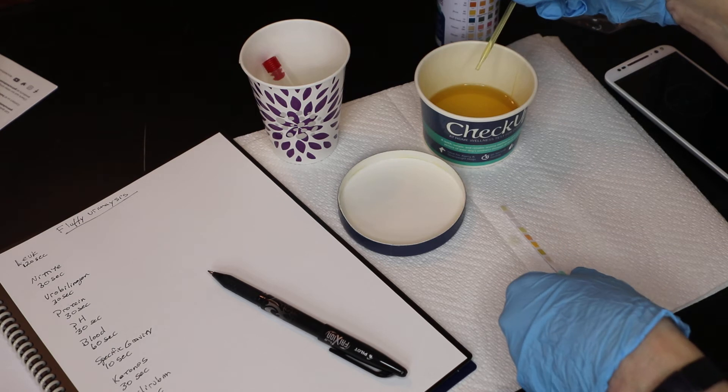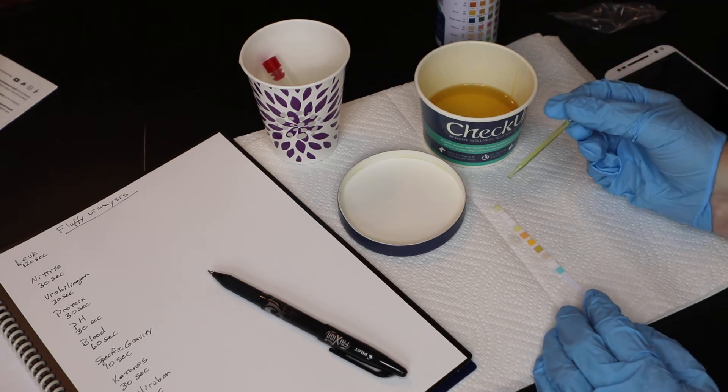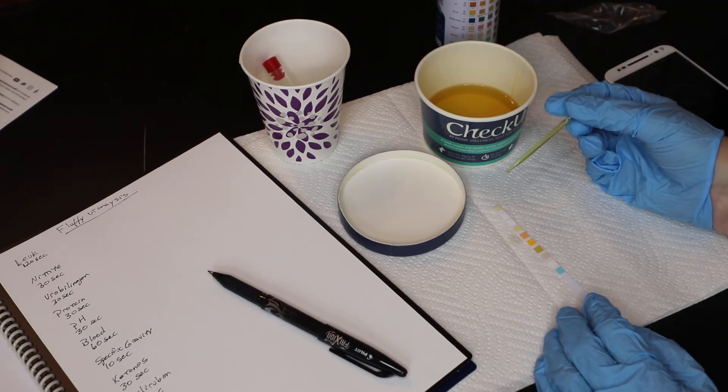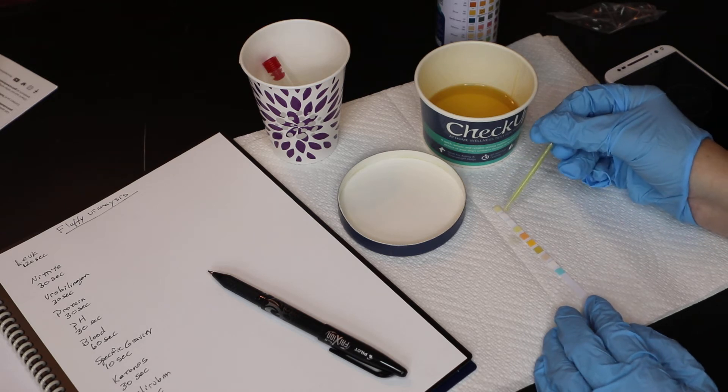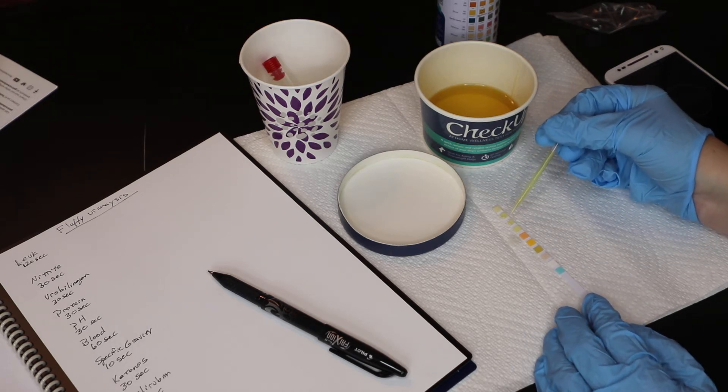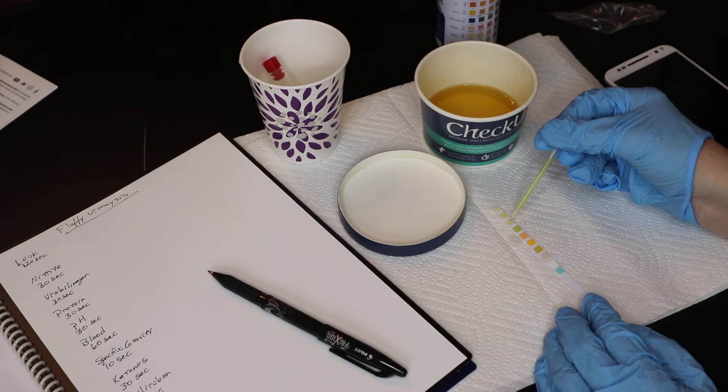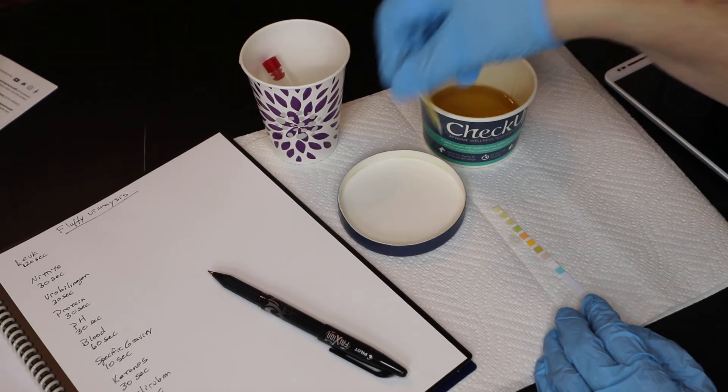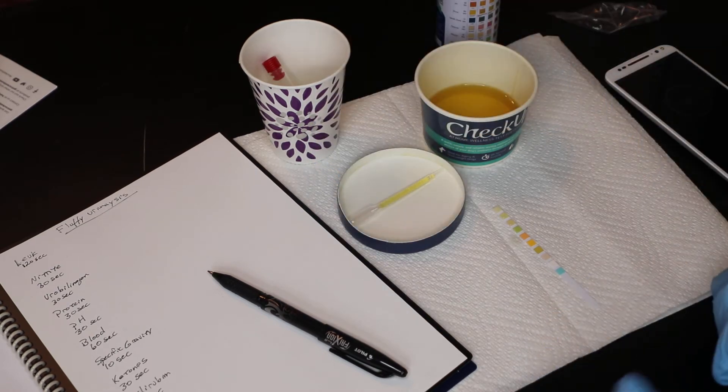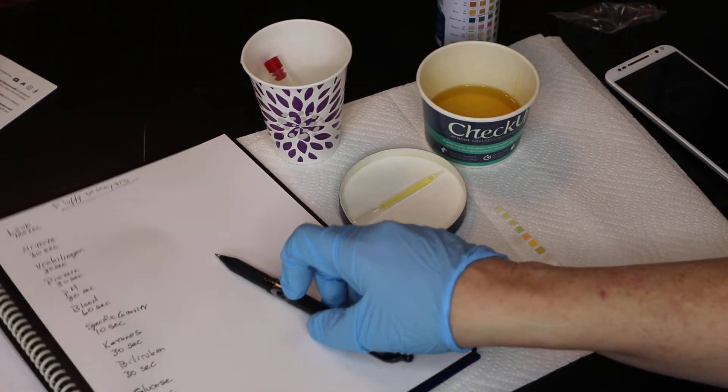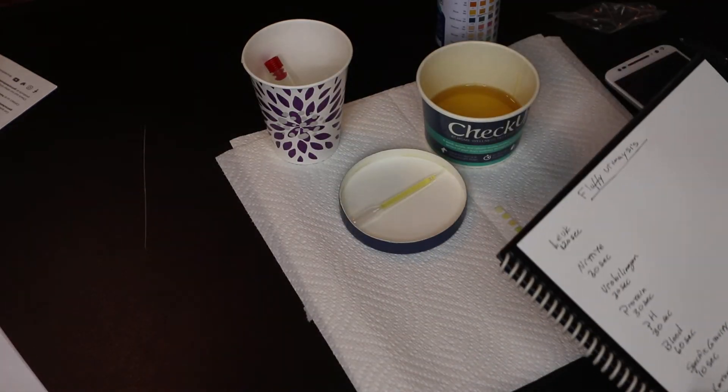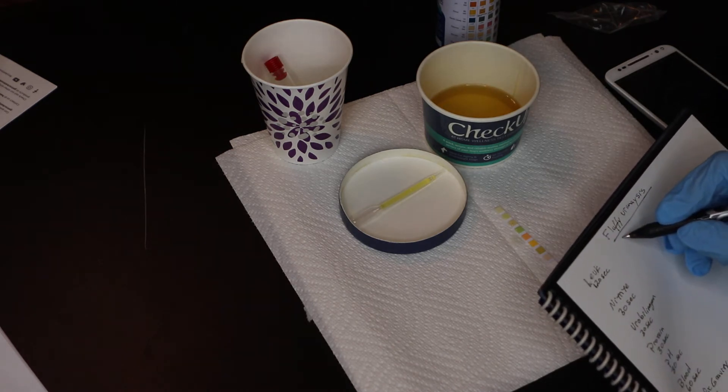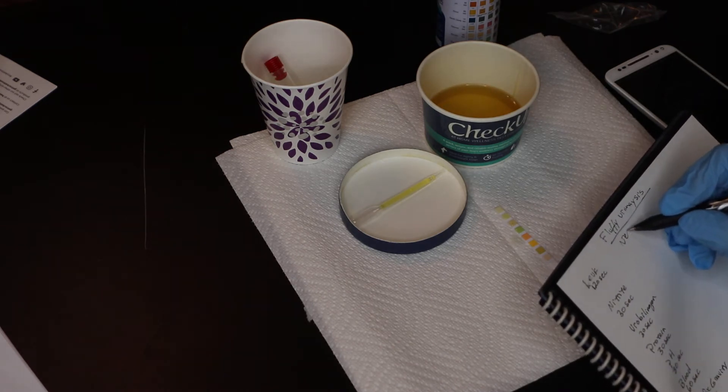And as you can see, that matches best to negative because there's no color. It isn't turning slightly brown or to a purpley color. So that is negative on the leukocytes. Now again, timing, and I'm just going to note the time as the timer runs. The next three pads are urobilinogen, protein, pH, and those can all be run in 30 seconds. So I'm going to put a drop of urine on each of those pads. And I'm also going to write down that first indice. And that was negative.